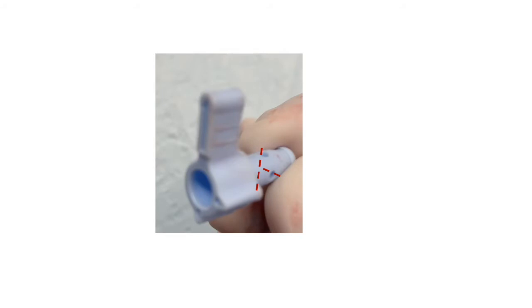If you look closely, there are arrow indentations on the side of the valve that correspond to the location of the openings. There is another one at the end of the long handle.